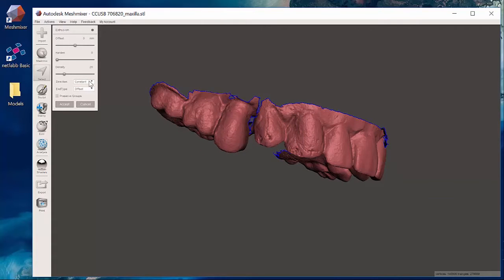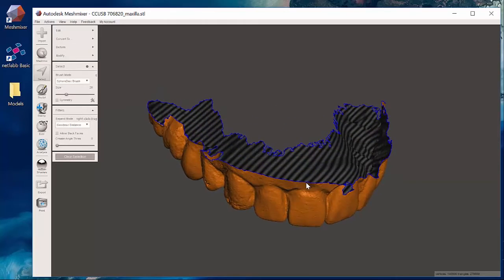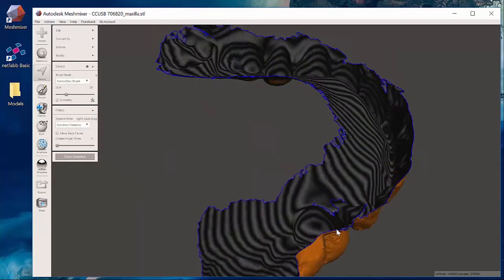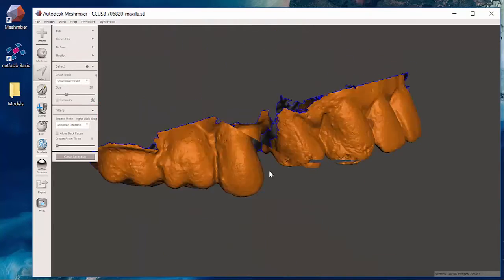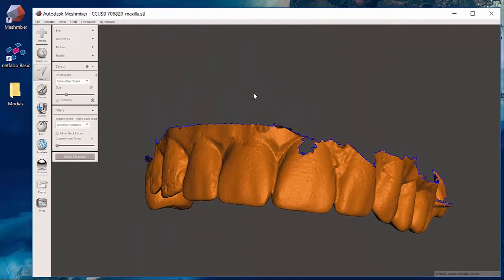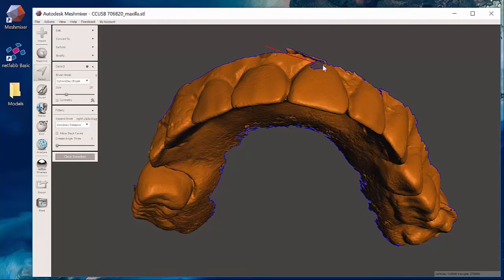So if I hit this and I draw my slider up nothing happens. You want to see this nice yellow color and usually the reason is that you've got a part of the model that's not allowing you to extrude.